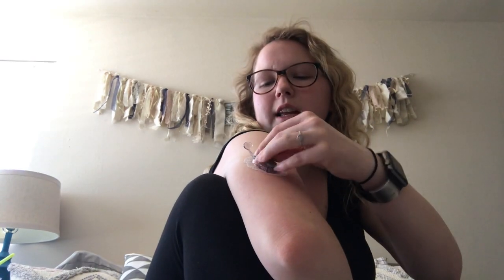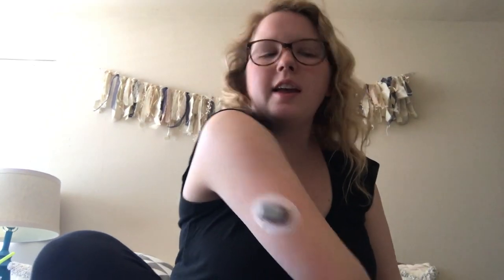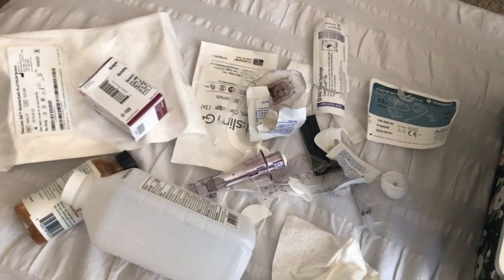So this is what it looks like. I still have a little piece right there — I'm going to slide this in right here and with that tab I'm going to push down until you hear the two clicks, and then I'm going to twist it off.